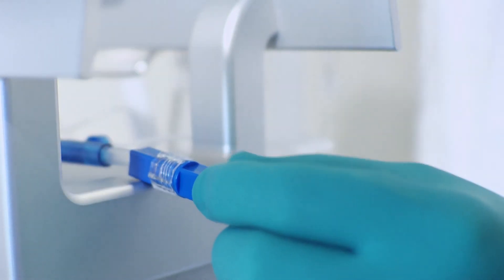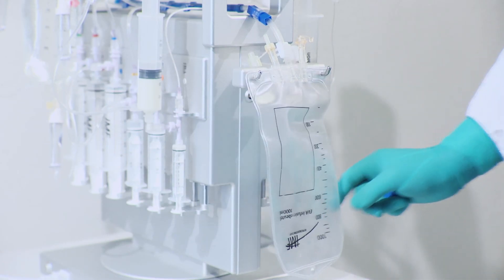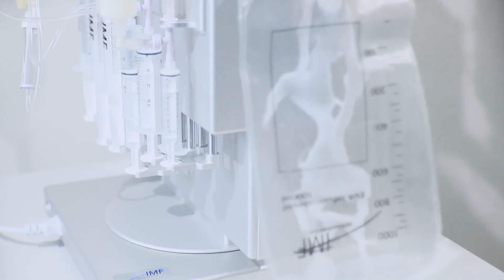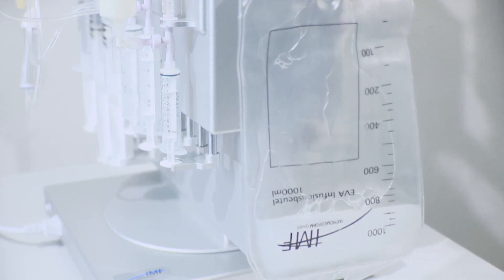When ready, the compounder will safely fill all the ingredients, following the predefined sequence to avoid possible precipitations like calcium phosphate.